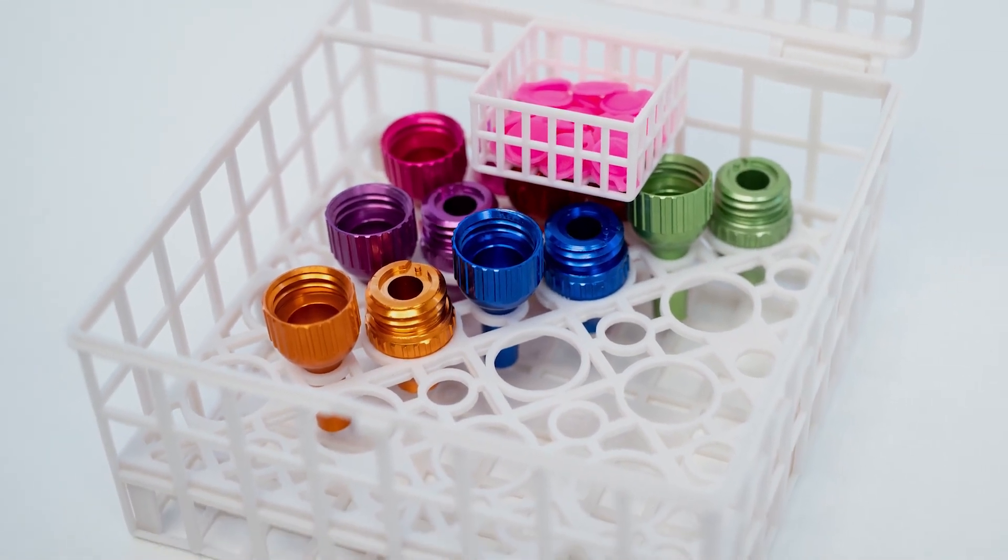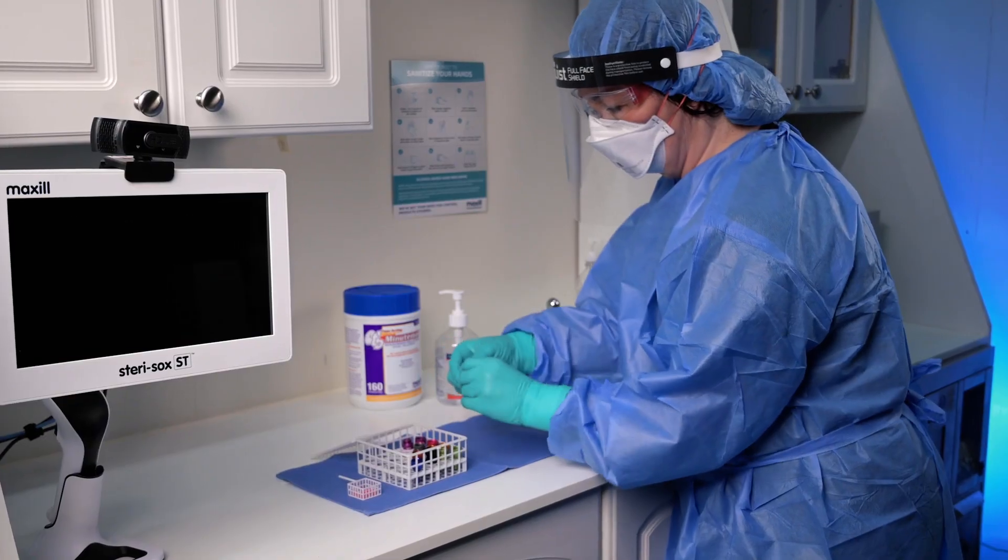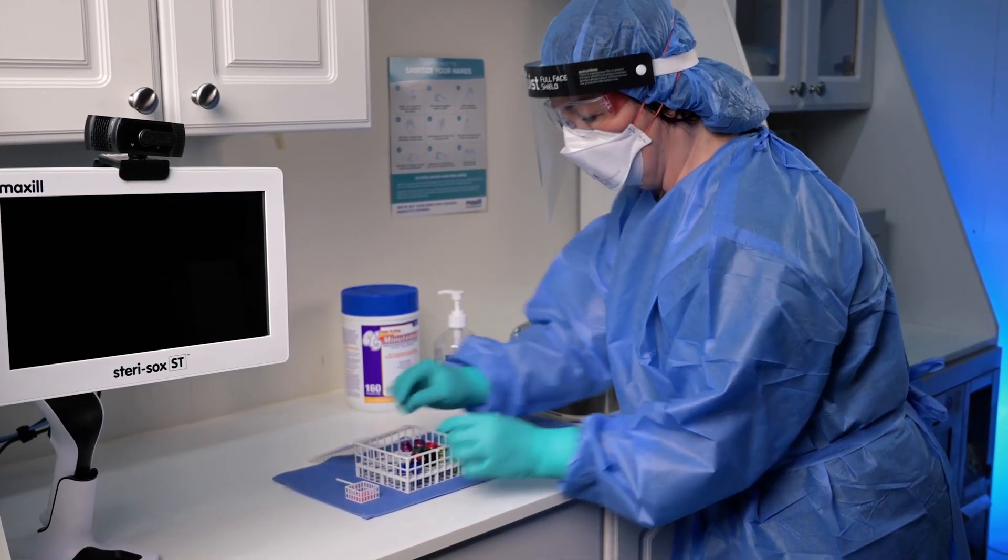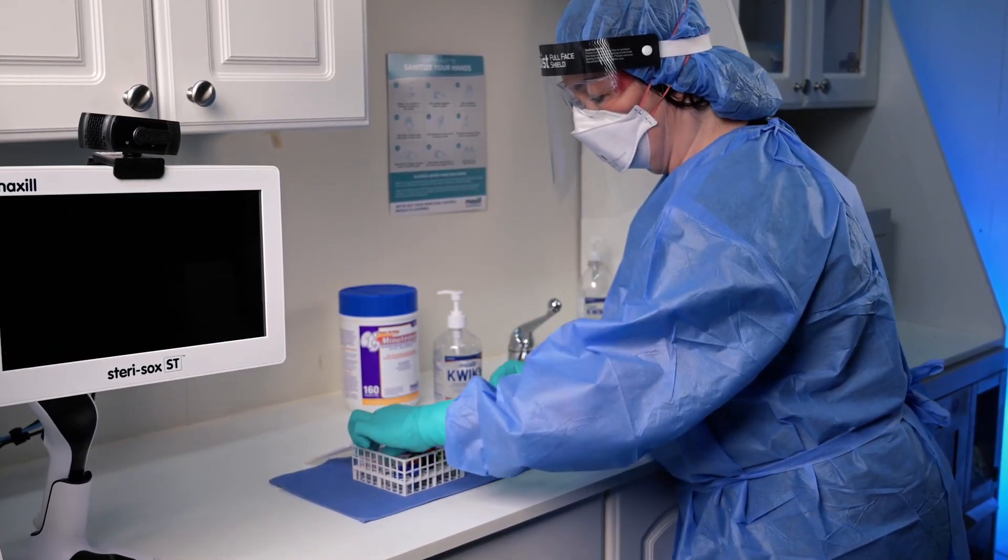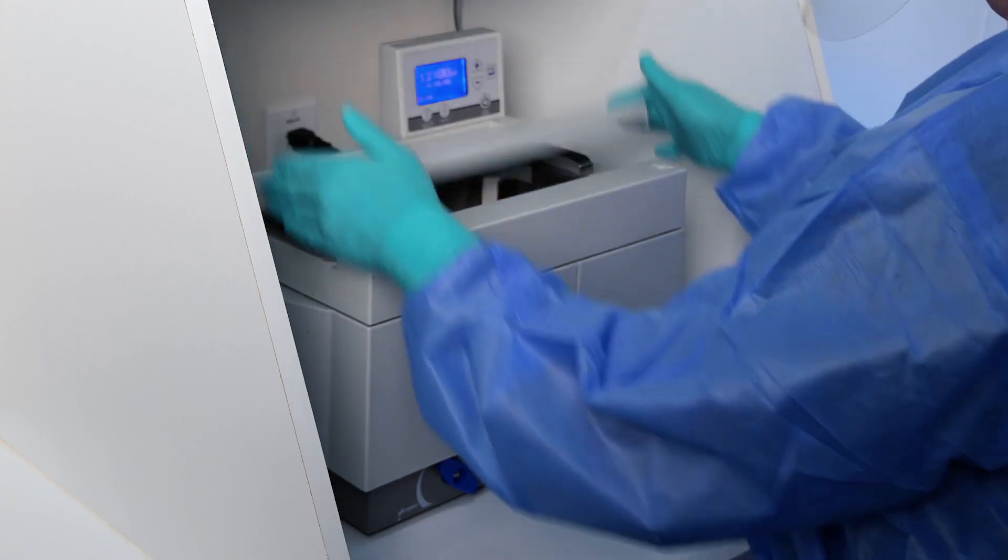MaxCheck's storage basket is engineered to conveniently house multiple valves and diaphragms. In addition, the basket features an easy-to-clean design that enables effortless washing and rinsing of multiple valves and diaphragms simultaneously, even in an ultrasonic bath or washer disinfector.